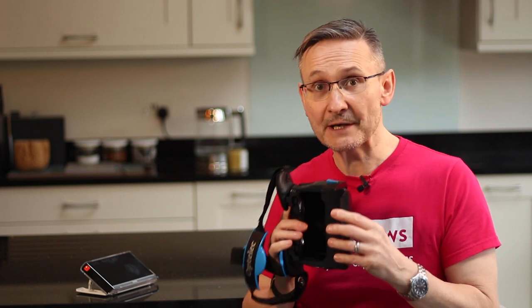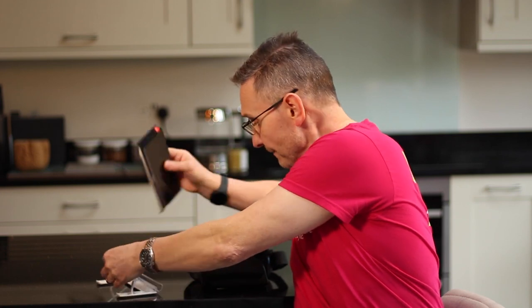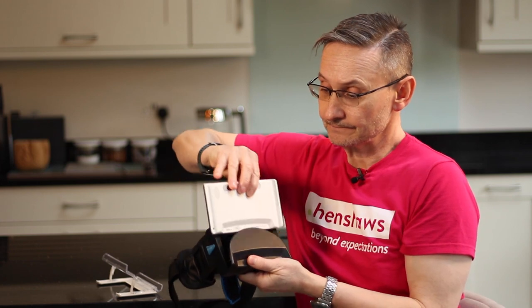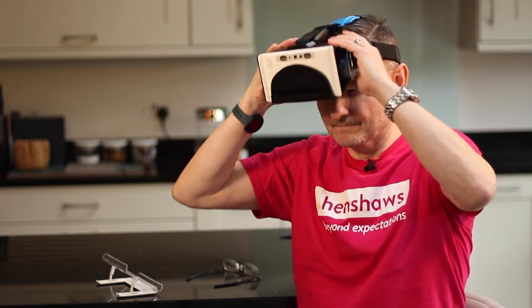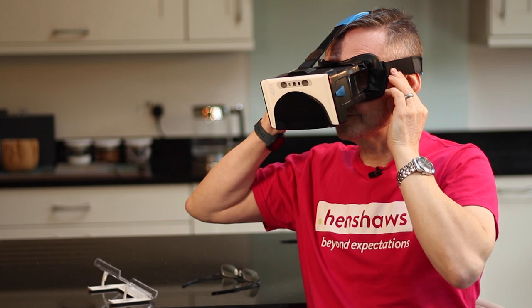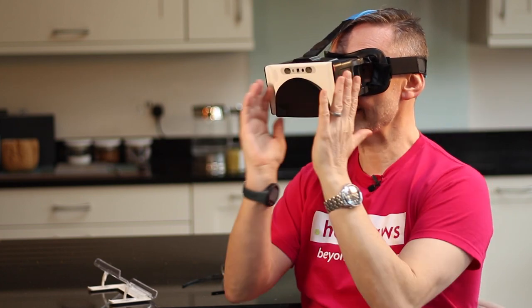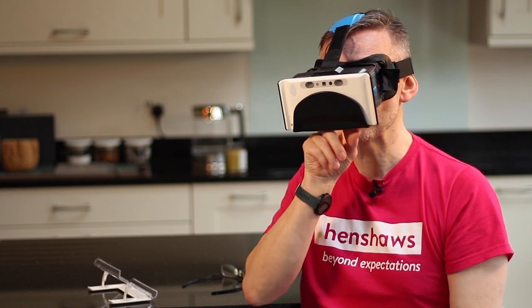This might be a really good solution for you — the only way you'll know is to try it out. If you've got any questions, queries or concerns, just let us know. So I'm going to show you how this works. It's dead easy. Take the HD out of its stand, slot it in. I wear glasses so I'll take them off. Hands-free. And if you like, you can easily remove the side panels. So now I've got my peripheral vision back, and the magnification is centred there. You change it by just bringing your finger into the screen, just as you normally would.